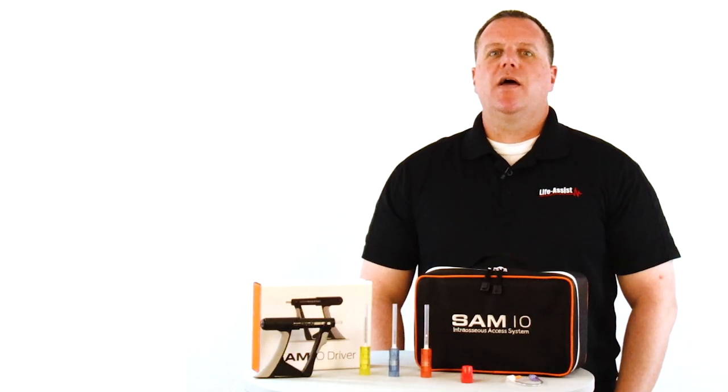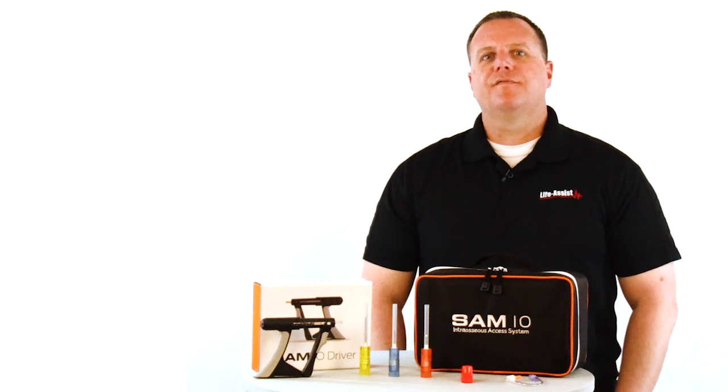That's a look at the SAM I.O. intraosseous access system. Compact, versatile, and easy to use for any experience level.